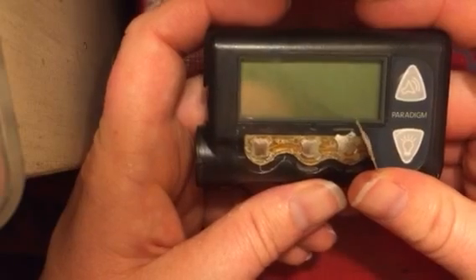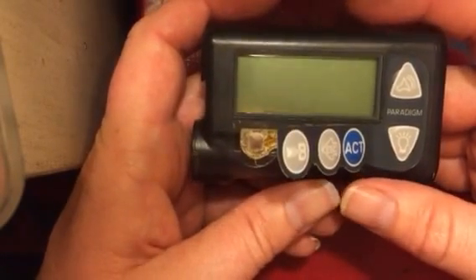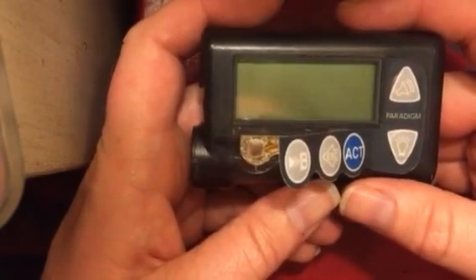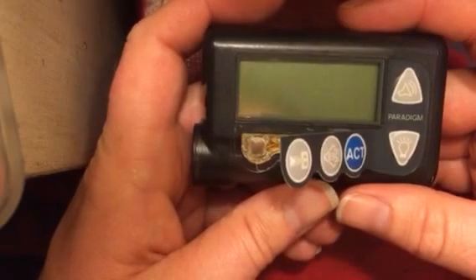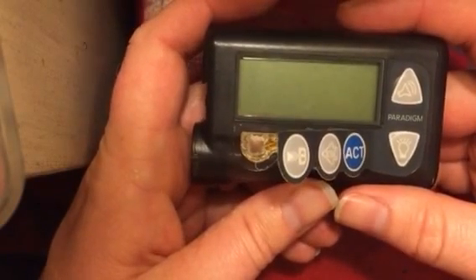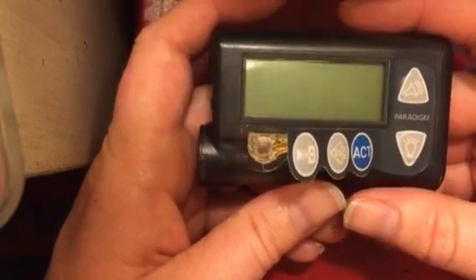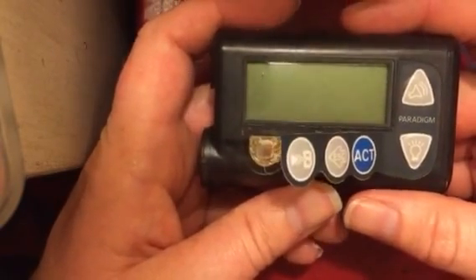The thing was, this pump was donated to me so that I could do this hacking. I would have to pay Medtronic a $495 fee in order to have it officially donated to me, and at that point they would probably just tell me they wouldn't replace it with a 522 — they'd replace it with a 523 because it's newer and they assume you want the newer one, and you don't have any say in what they send to you. So basically a total closed door.